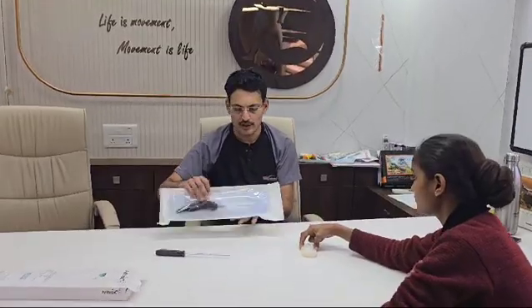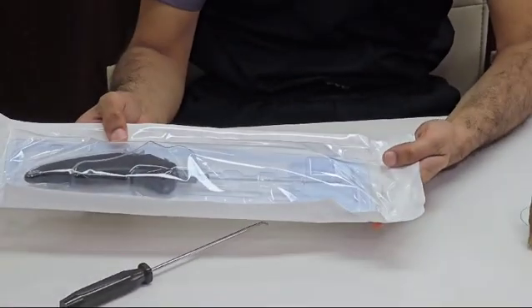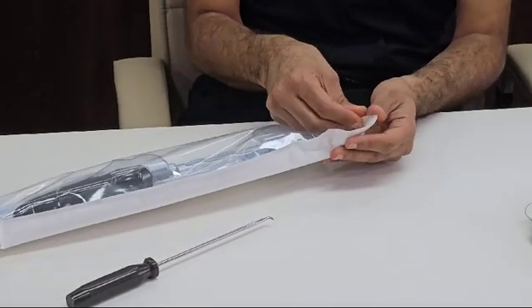Now the technical aspect - it's a very easy procedure, technically easy to use a fiber stitch implant. When you see the implant, it comes like this - this is the fiber stitch implant in the packing, so we just have to open it up.